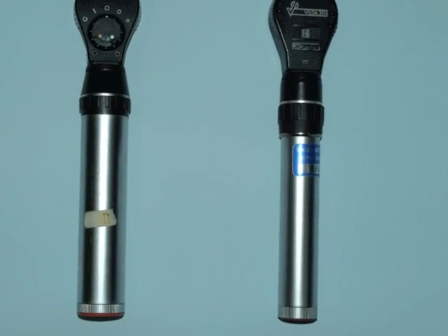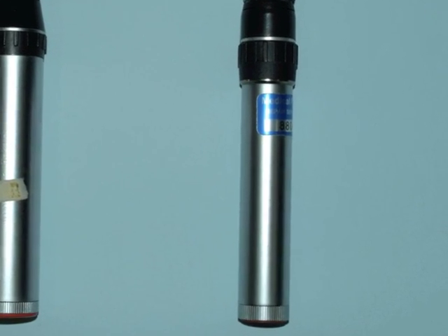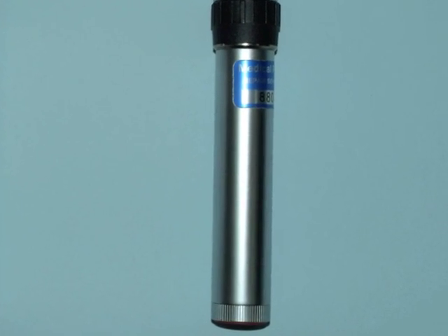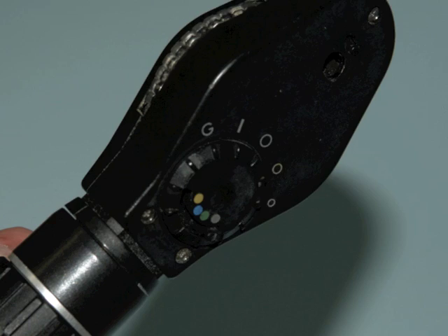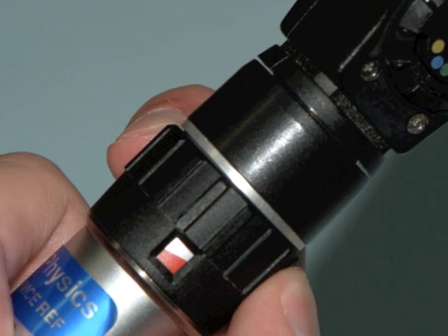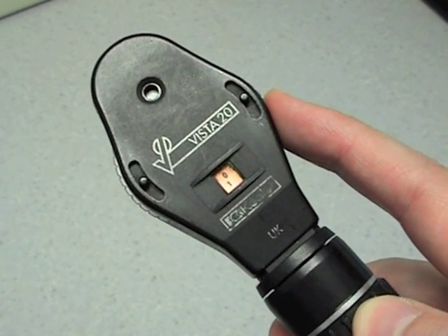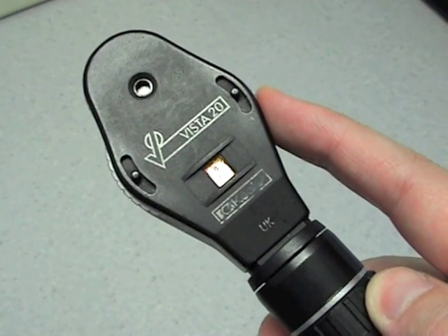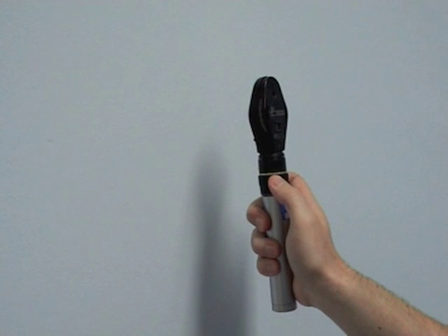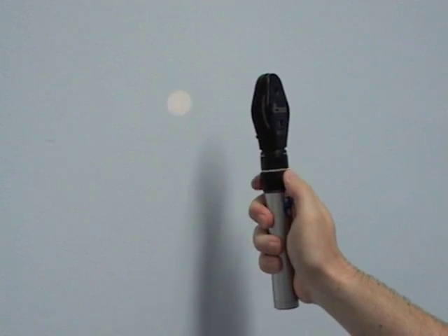The handle contains the battery pack. Some will be single-life units, some will be rechargeable. Most ophthalmoscopes have a rotating cuff at the top of the handle which switches the light on, and it can also be used to adjust the strength of the light.